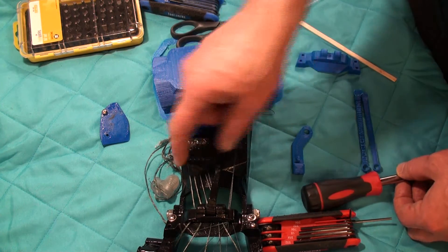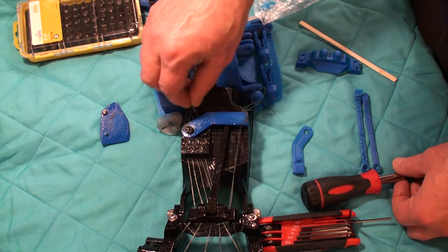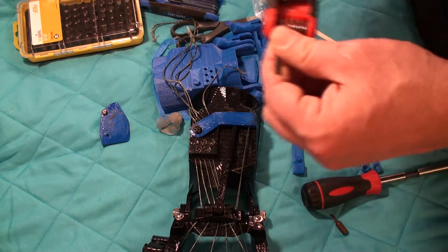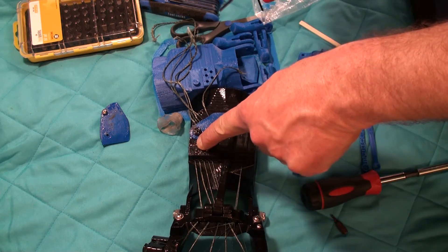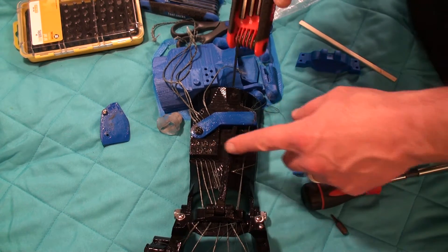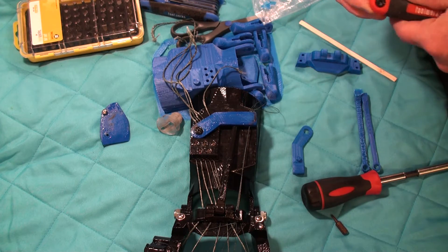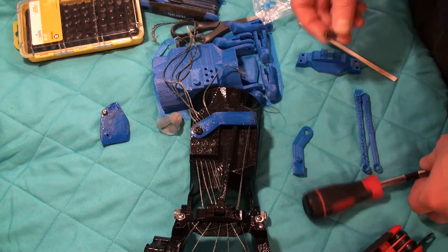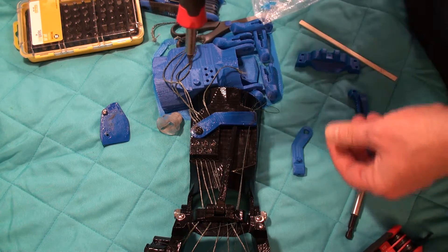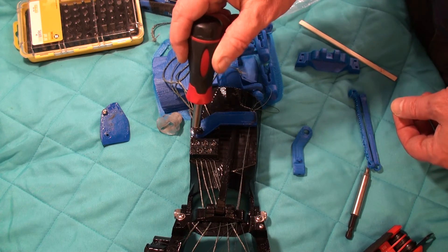The flexors go through these holes and they actually come out the back, and they're held in place with set screws — these are 10-24 set screws. It's an American size, so I'm doing this for my friend in Belgium and he's going to have to find metric sizes that'll bite into the plastic. It's just threaded into the plastic.